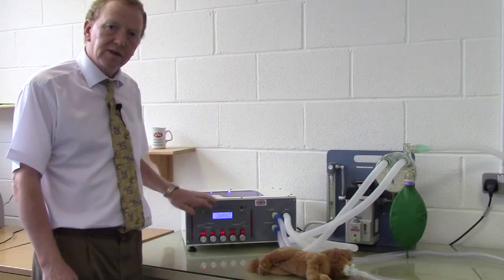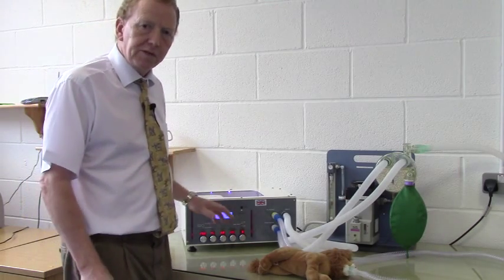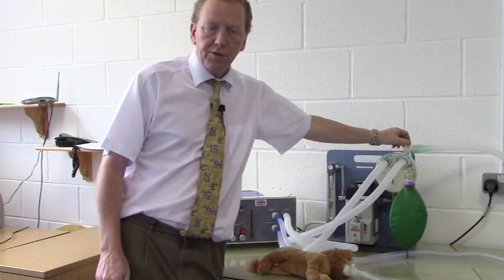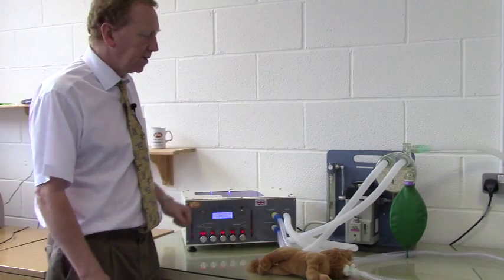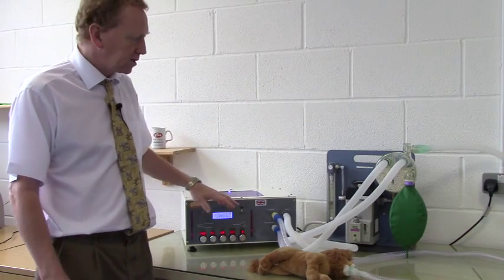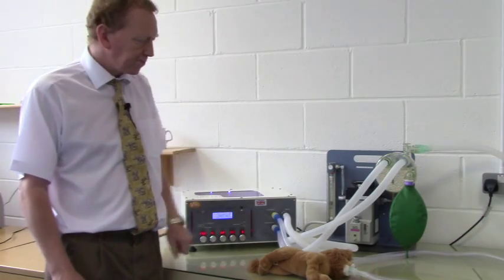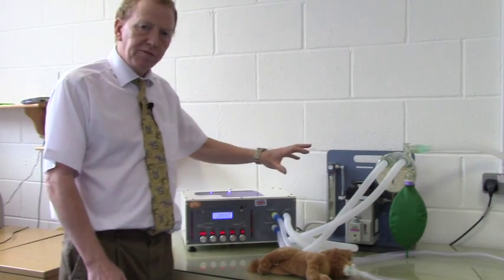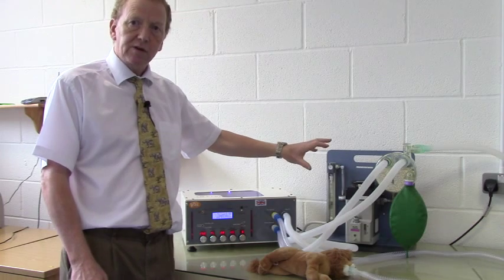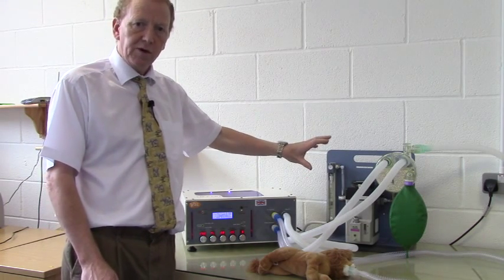Merlin comes on, does its self-check, and then is ready to use. The configuration for this rebreathing circuit has been covered elsewhere in previous videos. I have it configured as a rebreathing circuit using the soda lime and a rebreathing bag. As mentioned in previous videos, this rebreathing bag is on the inspiratory side of the circuit, where it must be to support the function of Merlin.